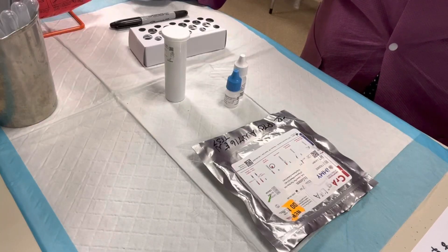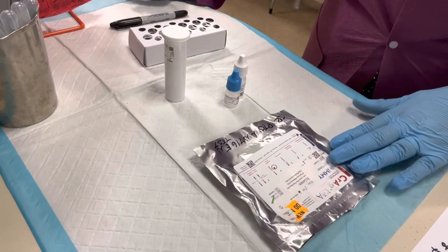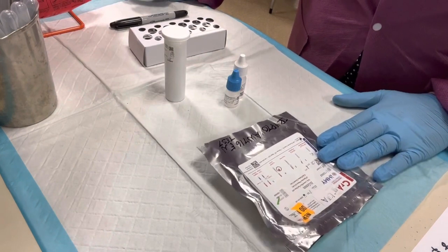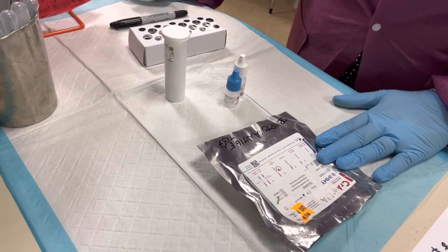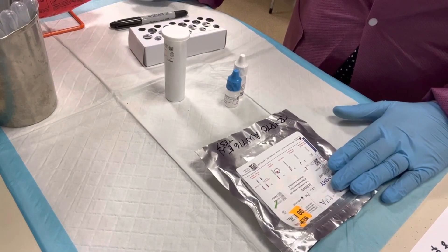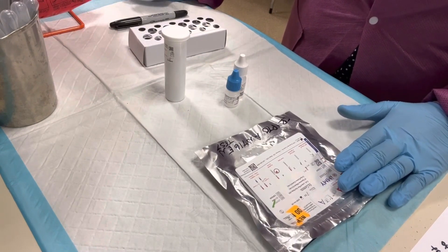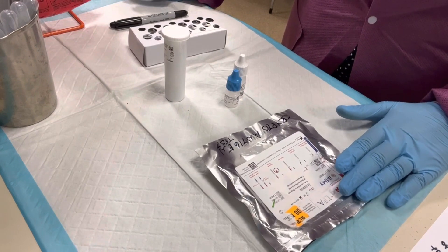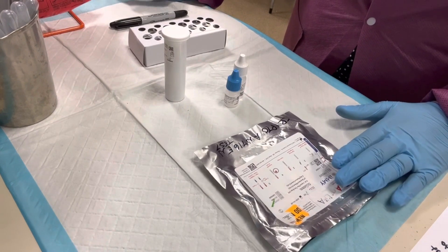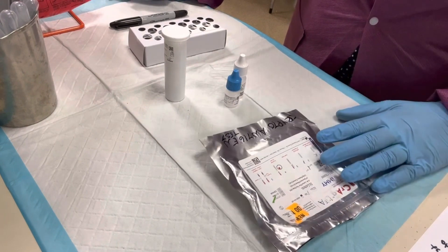I'm going to be demonstrating how to perform the Cryptococcus antigen lateral flow assay by the company called IMMY. This is a lateral flow assay used to detect the cryptococcal antigen in whole blood, serum, plasma, and also in cerebrospinal fluid. It is a dipstick immunochromatographic assay produced by IMMY.